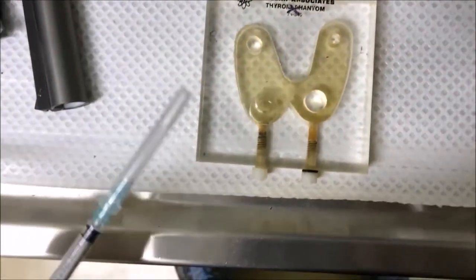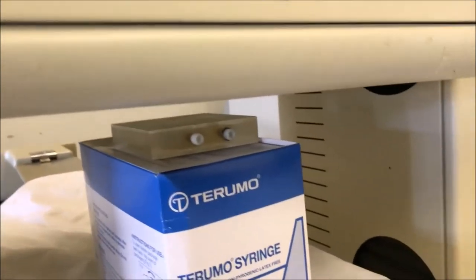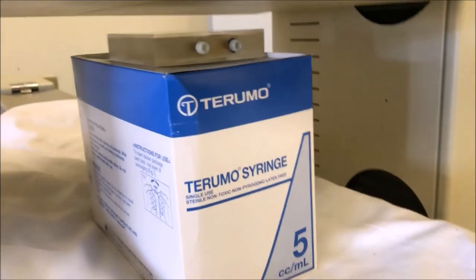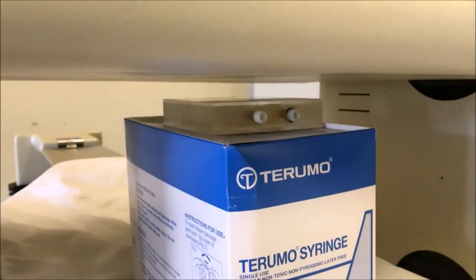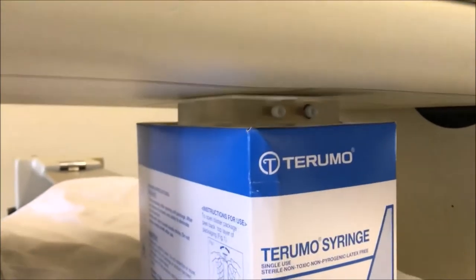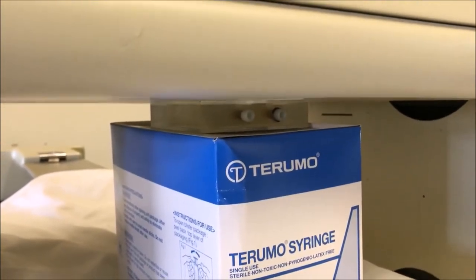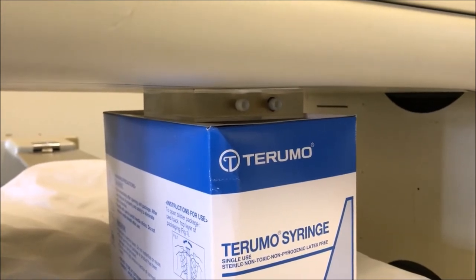So what we do, once we've filled it up — presuming we've put 6 megabecquerels into the phantom, mixed it around, and got rid of the air bubble — we bring it out to the gamma camera. We're going to scan it at zero centimeters. We pop the phantom on a low-density box to position it close, then raise the bed up so it's touching the camera — that's zero centimeters. We'll do an acquisition with a 512 matrix for five minutes in that position, and that will be your zero centimeter image.